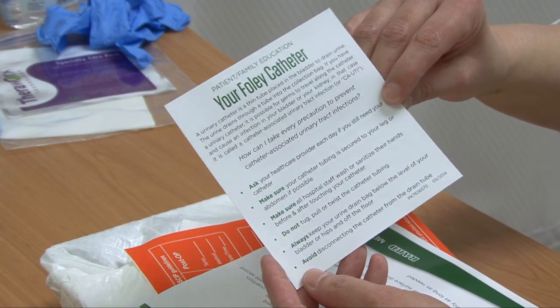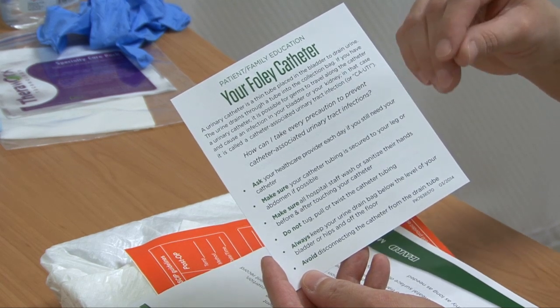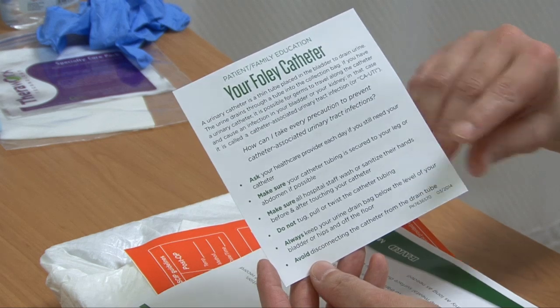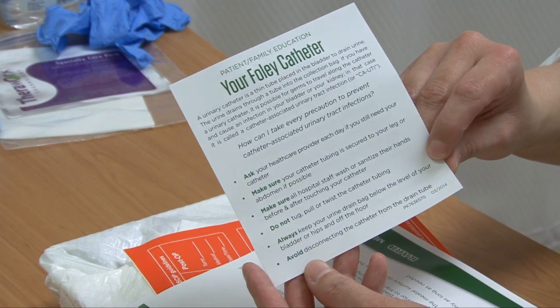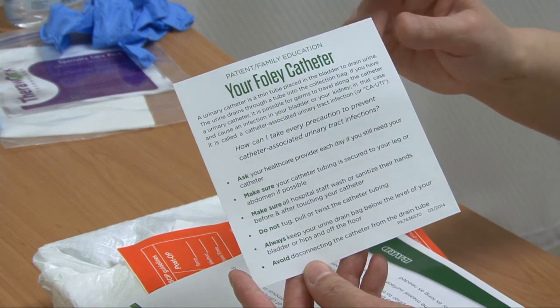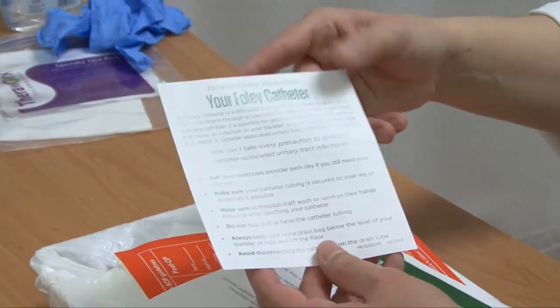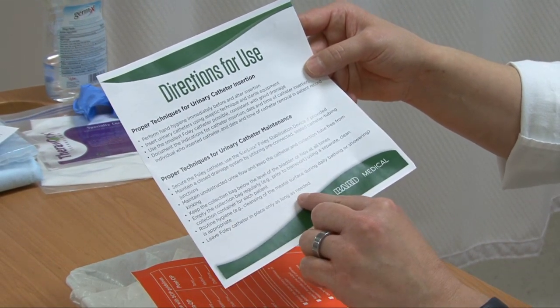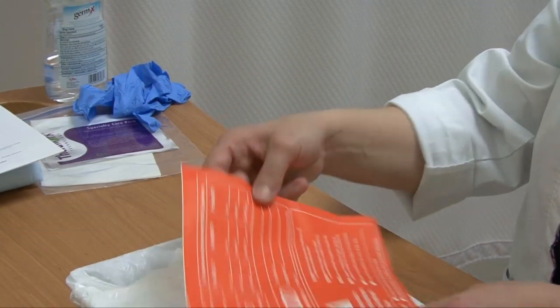The kit also contains patient education materials talking about your Foley catheter. Key points: take catheters out as soon as you can to prevent CAUTI; make sure catheter tubing is secured to the leg or abdomen to prevent urethral trauma; hospital staff must wash or sanitize hands before touching the catheter; do not tug, pull, or twist the tubing — it needs to remain without kinks; the catheter bag needs to remain below the level of the bladder so urine doesn't back up; and avoid disconnecting the catheter from the drain tube to maintain the closed system.